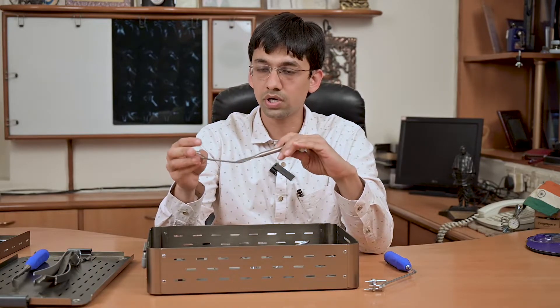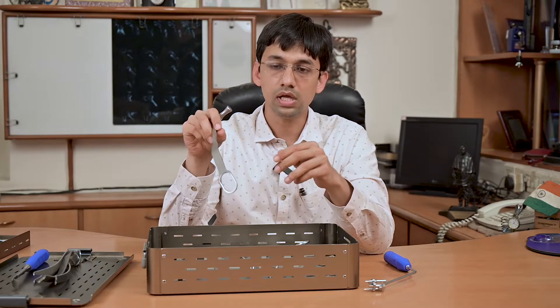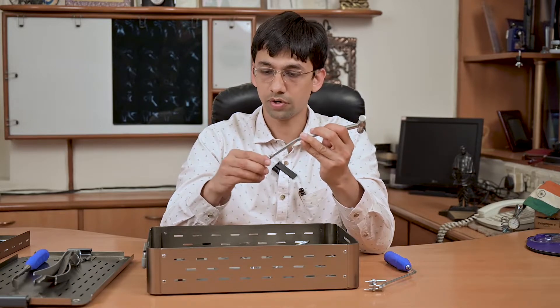This is a very important instrument — it is known as the Fukuda type humeral head retractor. It comes into the glenohumeral joint and helps in retraction of the humeral head for easy and better accessibility of the glenoid side.